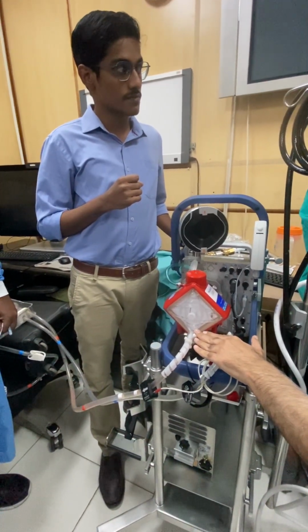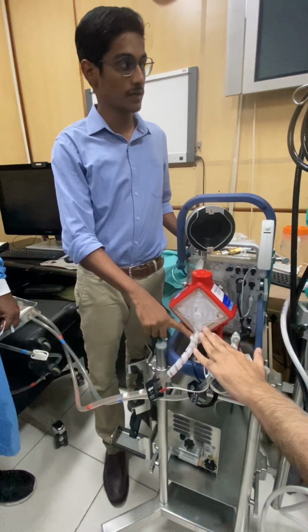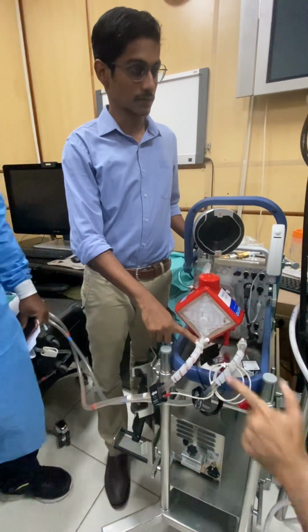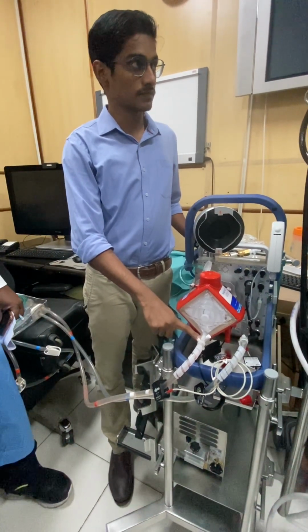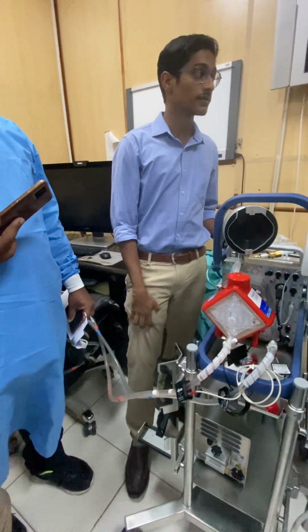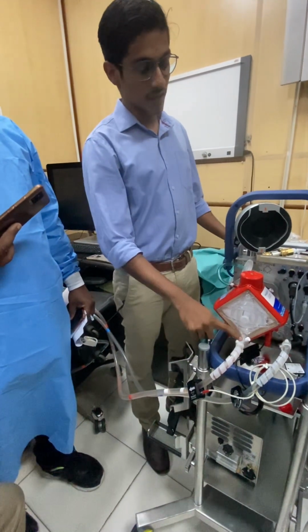ड्यूरेशन और इसमें भी एयर आने के चांसेस हैं. इसमें नहीं, chances ये तो कम है. तो ठीक है, बट ये अगर करें कि अगर ये काम नहीं करेगा, ये प्रेशर आ रहा है, तो आप यहाँ से ले सकोगे प्रेशर. एयर का इंट्रोडक्शन यहाँ से भी है. एयर के लिए यहाँ से इधर साइड कम पे तो वो खोल सकते हो, अंदर साइड में पूरा हटा के करना पड़ेगा. यहाँ से कम है क्योंकि यहाँ पे पॉजिटिव प्रेशर है.